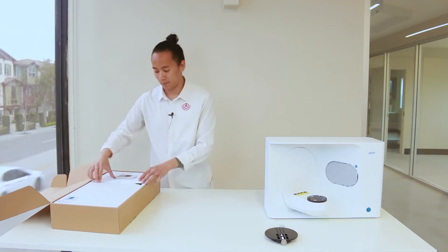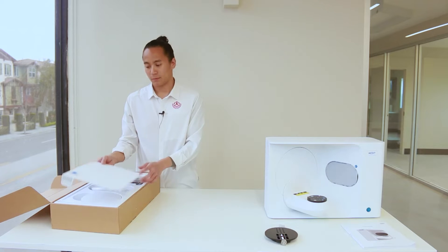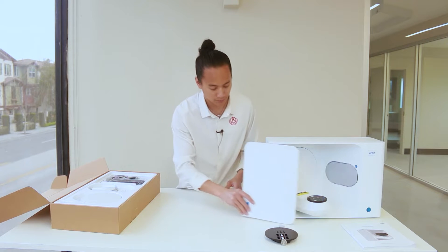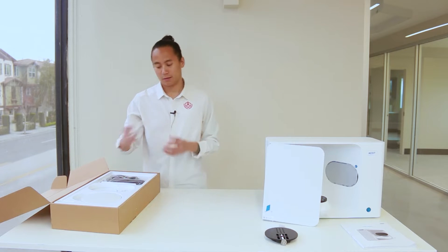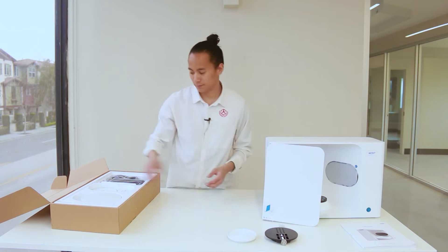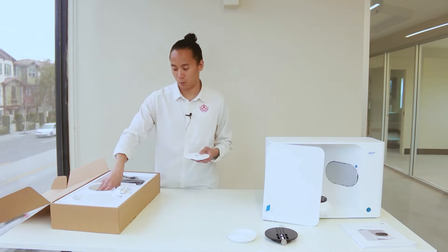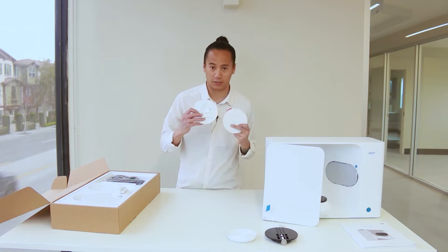We'll take our quick start guide, place this off to the side. Here we have our LED protector. Slide that right in there. This is your flex multi-die plate. Here are separate jigs for different types of articulators.